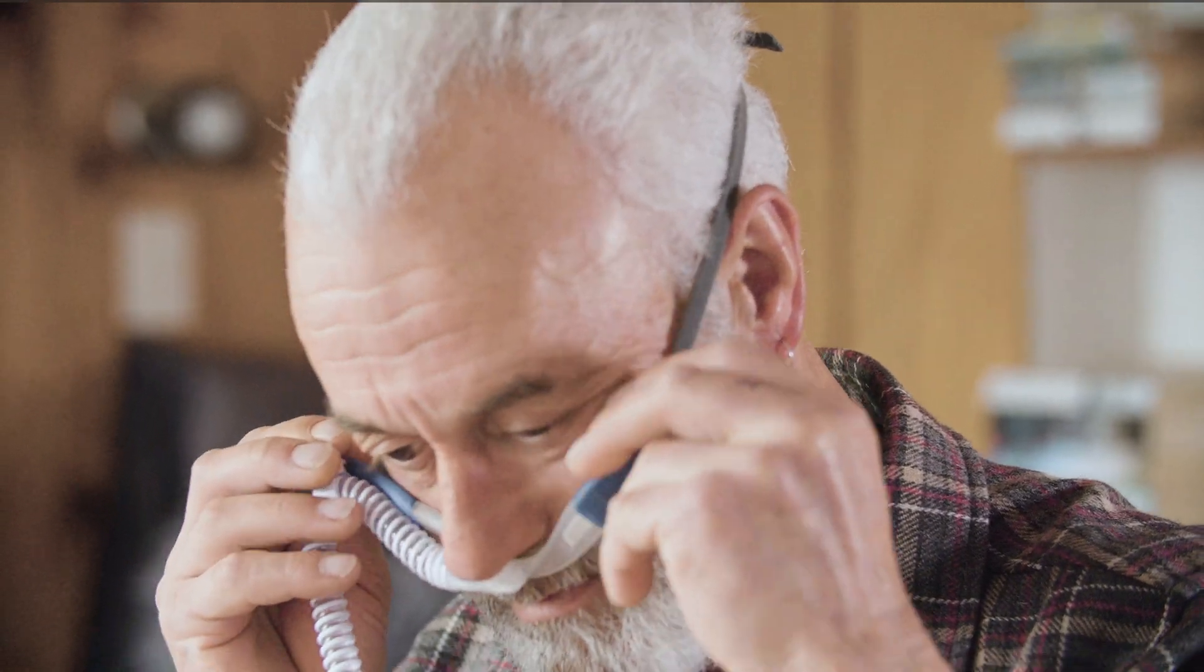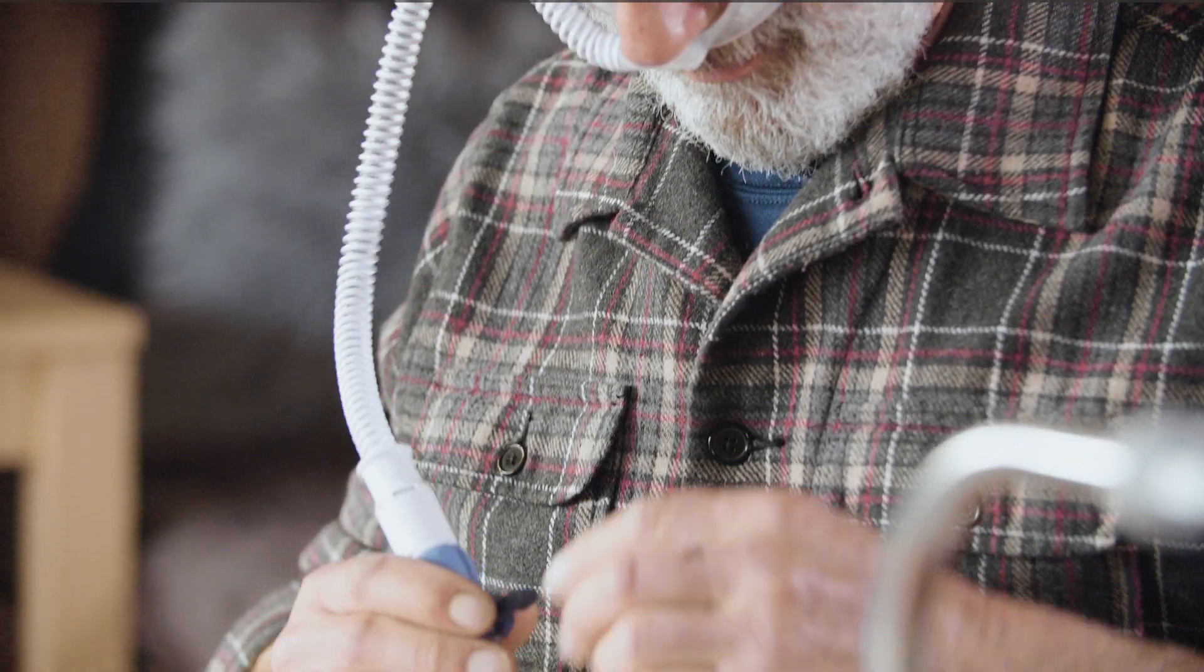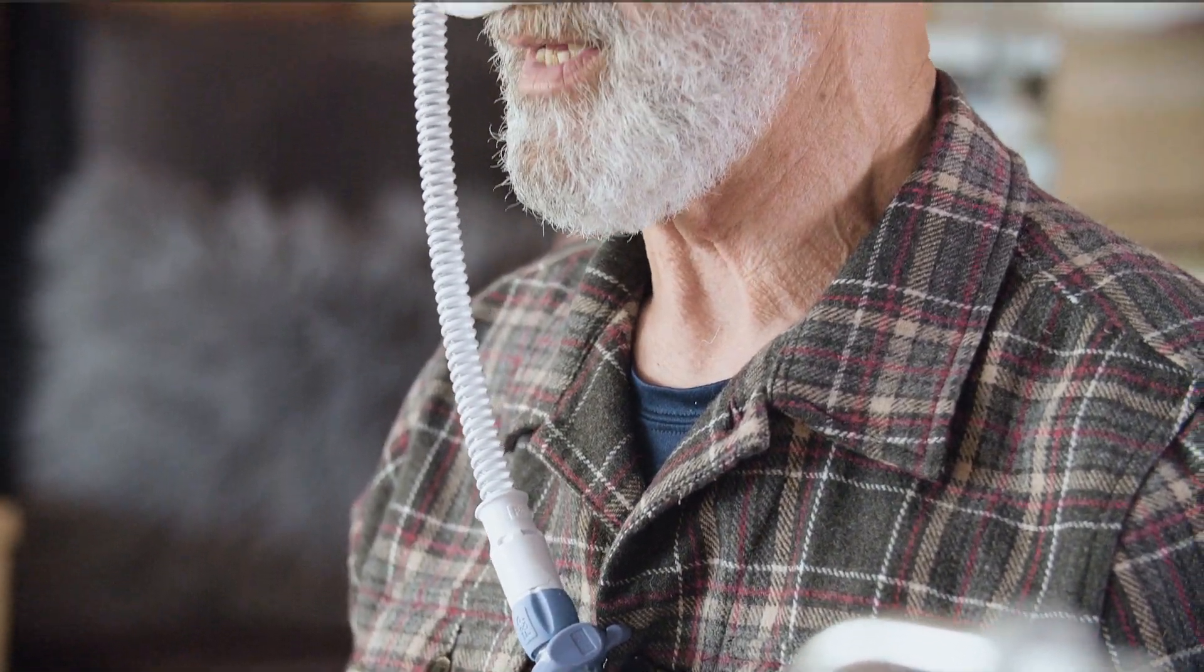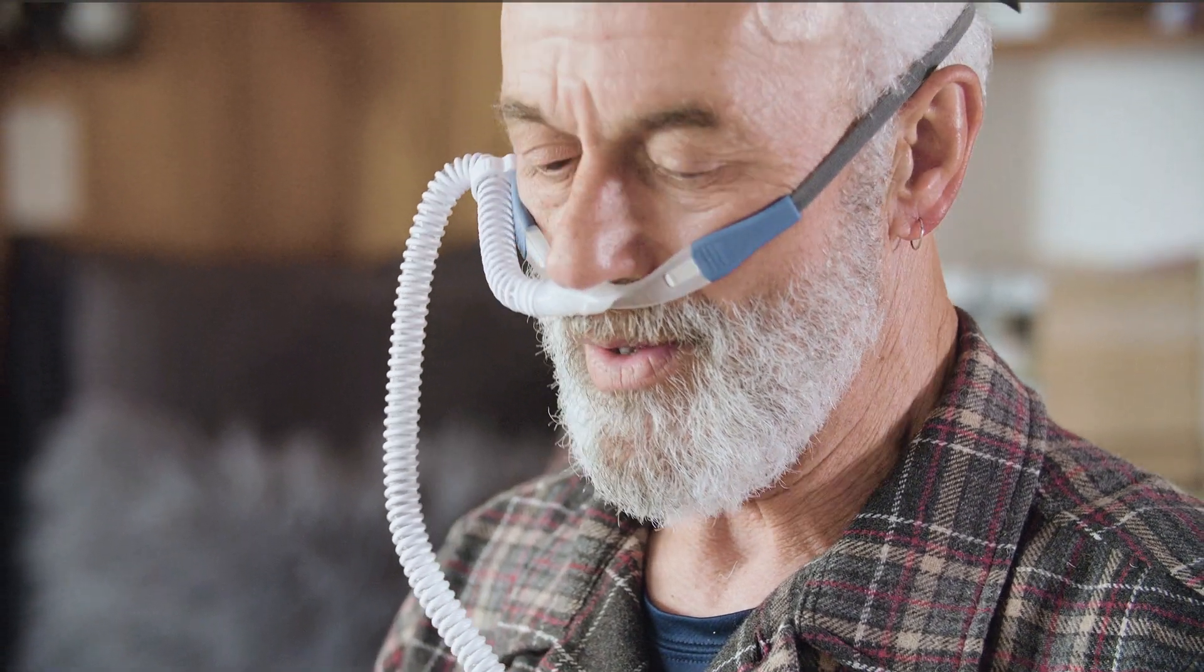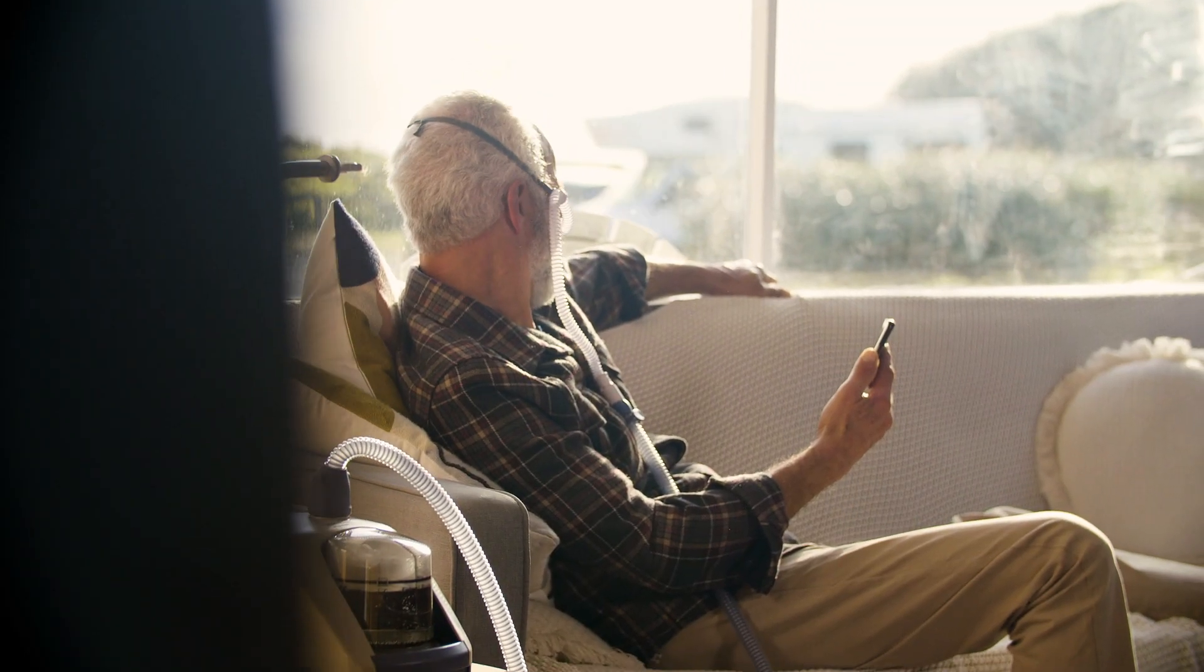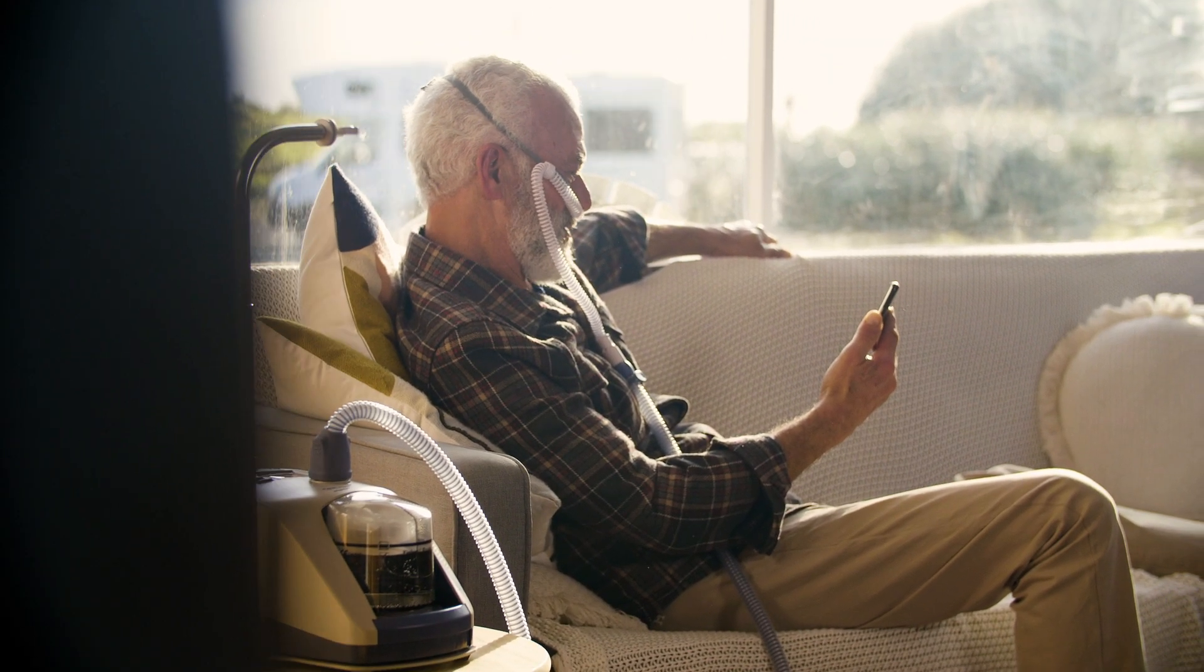Humidified high flow therapy also generates airflow to reduce the work of breathing. The therapy is delivered through a comfortable Optiflow nasal cannula. Patients can eat, drink, and talk during the therapy. The myAirvo 2 is an advanced humidified high flow system.